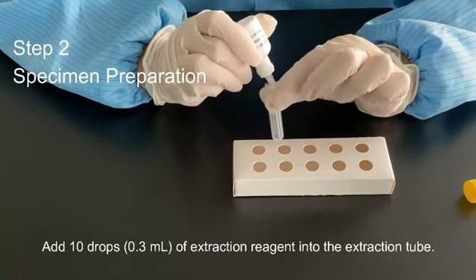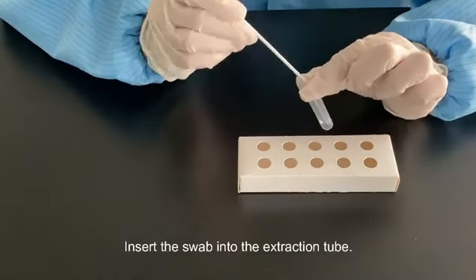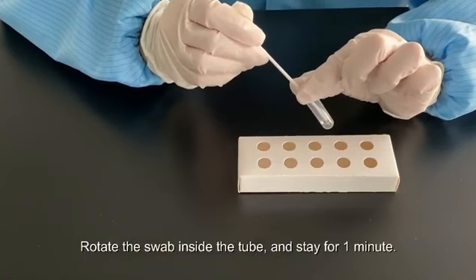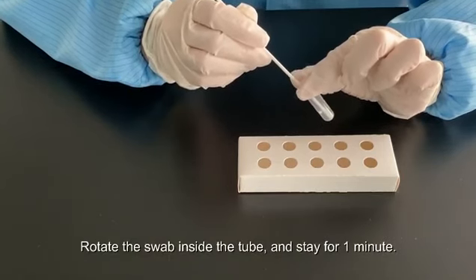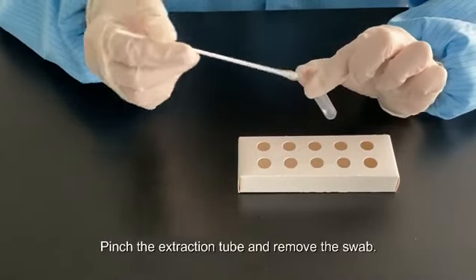Add 10 drops of extraction reagent into the extraction tube. Insert the swab into the extraction tube. Rotate the swab inside the tube and leave it for 1 minute. Pinch the extraction tube and remove the swab.